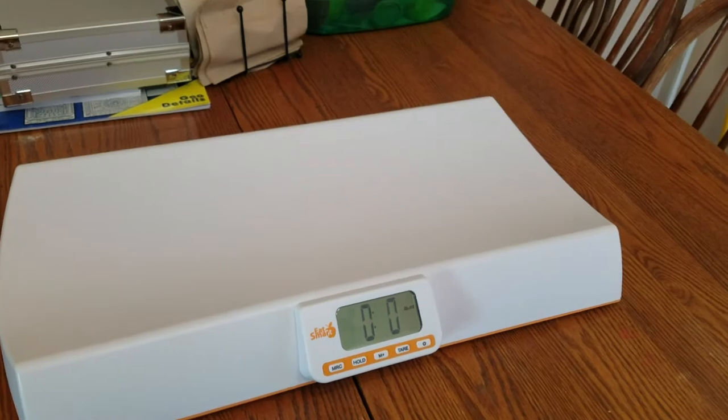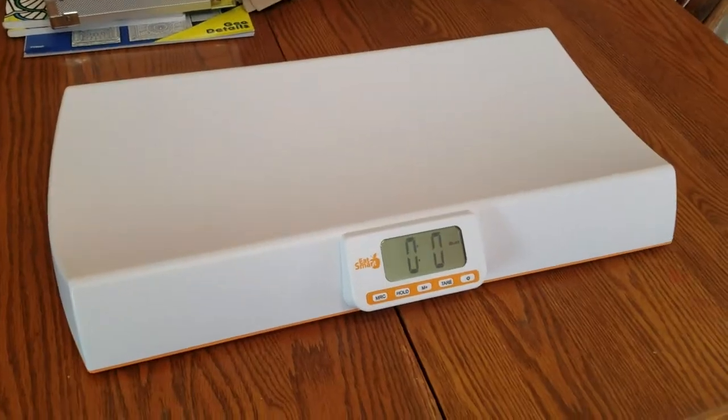She is really so much better with it when she sits down on the scale, which has been giving us accurate readings. Can you see me? So I apologize that this video has taken a little bit to come up.